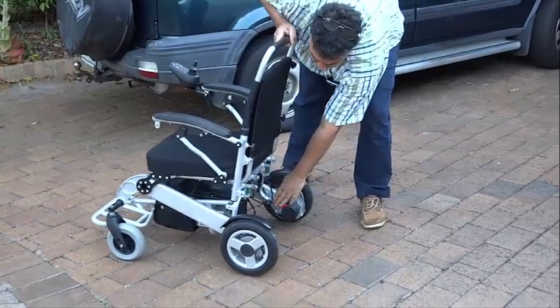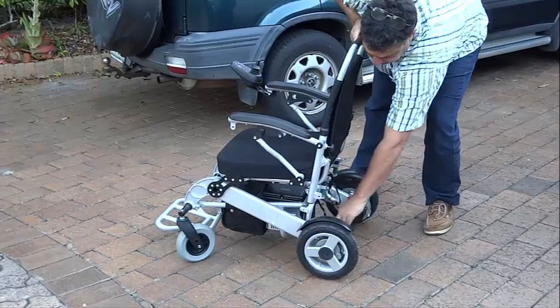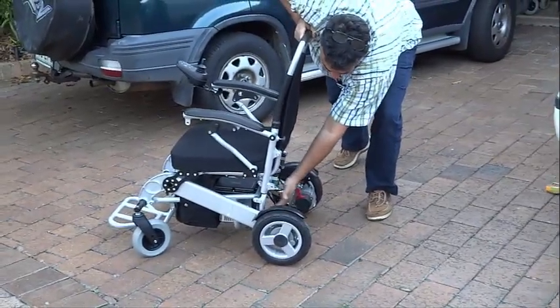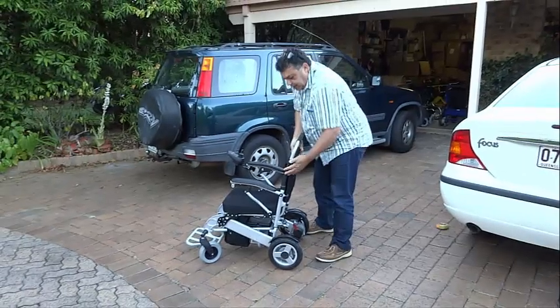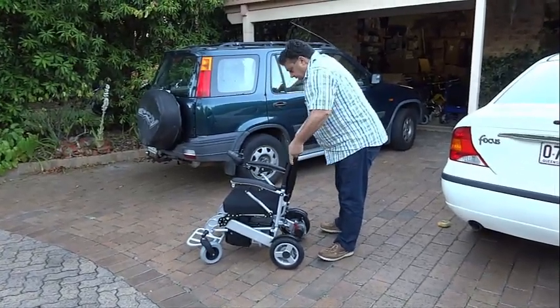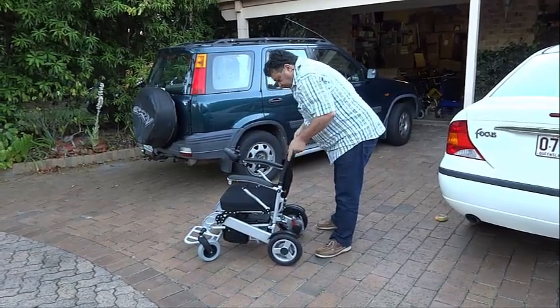The larger 10 inch or 25cm wheels together with the more powerful motors provide an incredibly powerful and rugged drive system, and your unit should last for at least a decade. Both the PortaShopper Grand and Super Grand can take 3 batteries at a time, resulting in a range of about 10–15km or 6–10 miles per battery per charge, so 3 batteries will triple that.